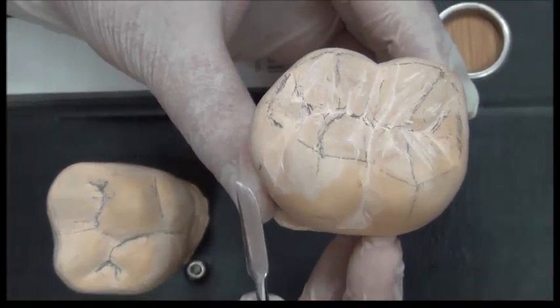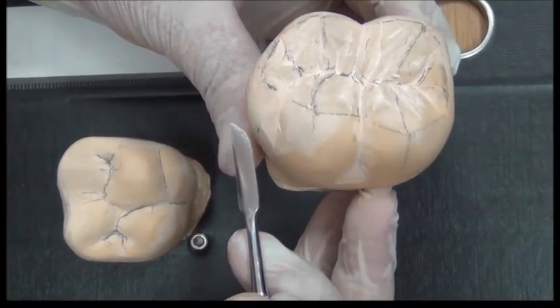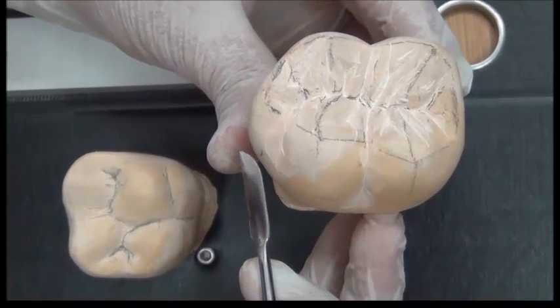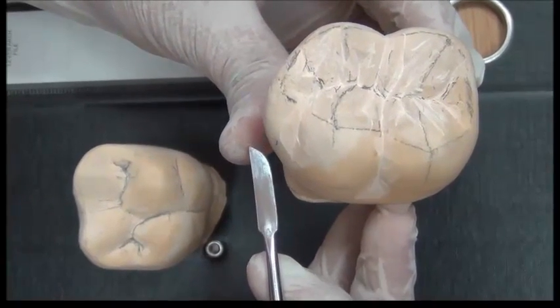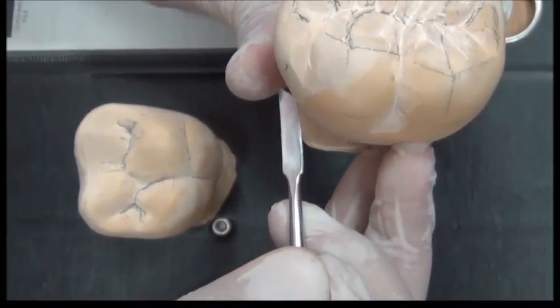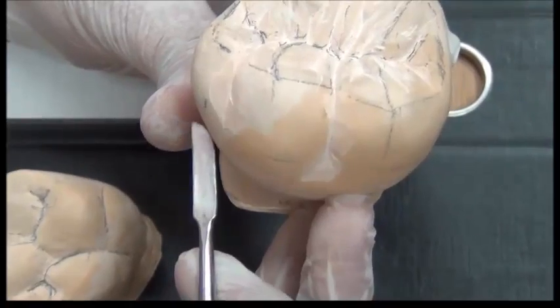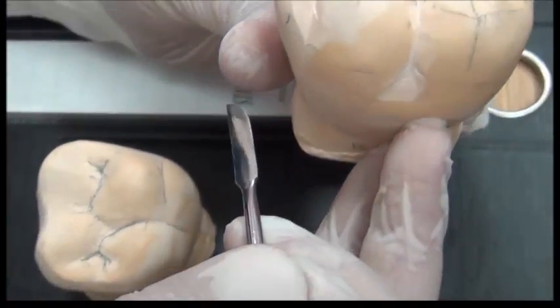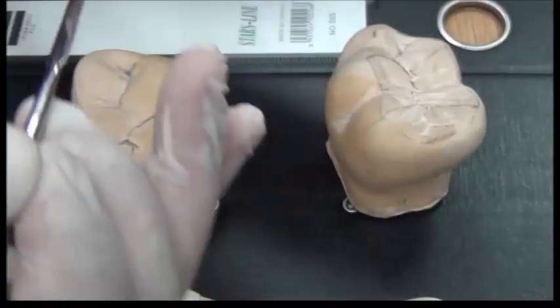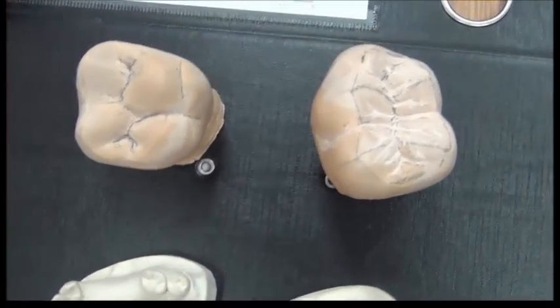I need a tool to actually tell me where is the undercut located first, and do I utilize this shallow undercut or do I need to go deeper or deeper? And how do I differentiate between different undercuts' depth? I need a tool.